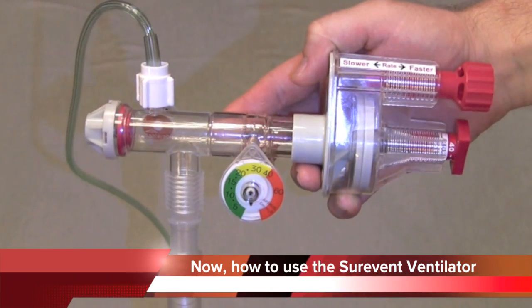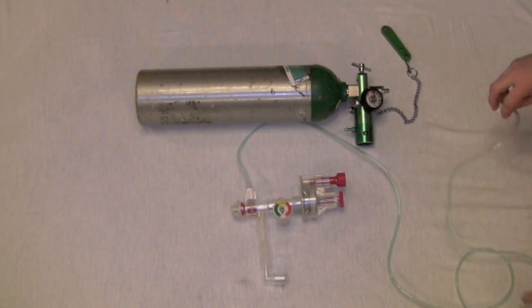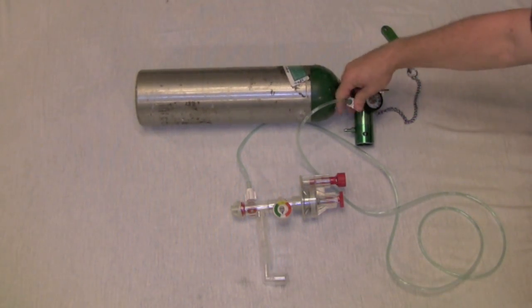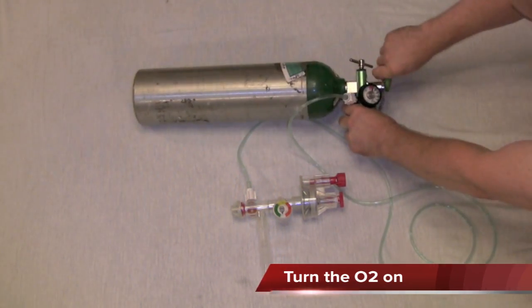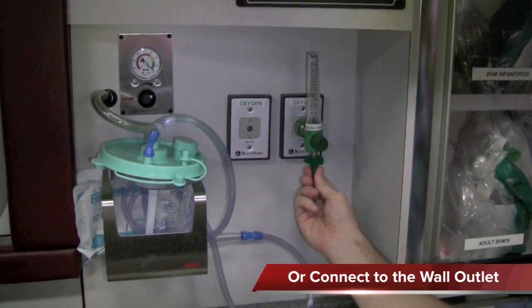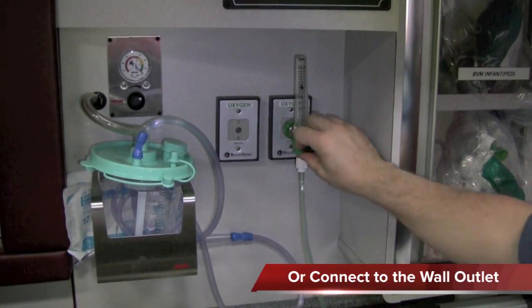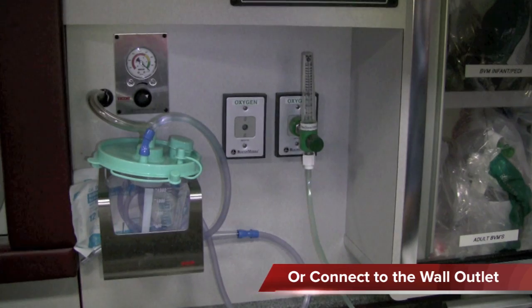Now, let's take a look at how to use the Surevent. First thing you want to do is screw the oxygen tank connector to the portable oxygen regulator and turn the tank on. There's no need to set the portable regulator. If you're in the ambulance, you can connect it directly to the wall outlet. In this case, you'll need to make sure the valve is on and turned all the way up between 15 and 25 liters per minute.